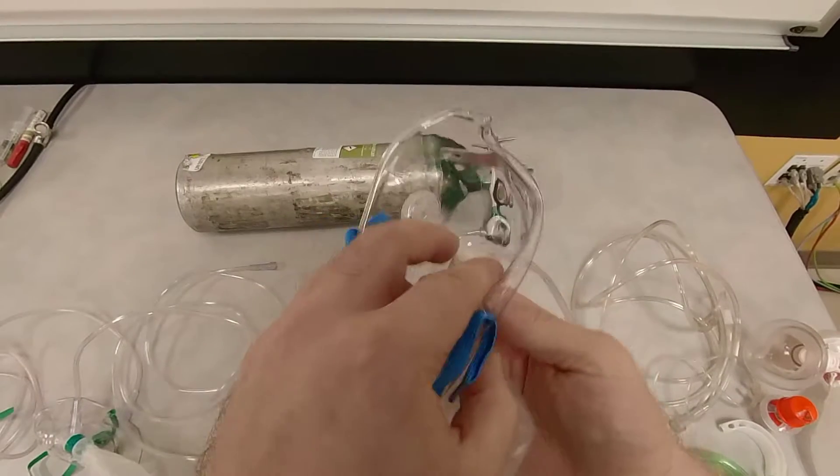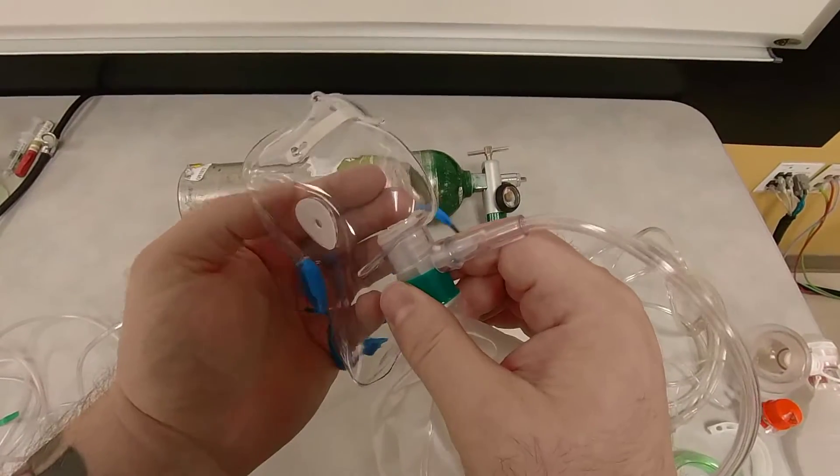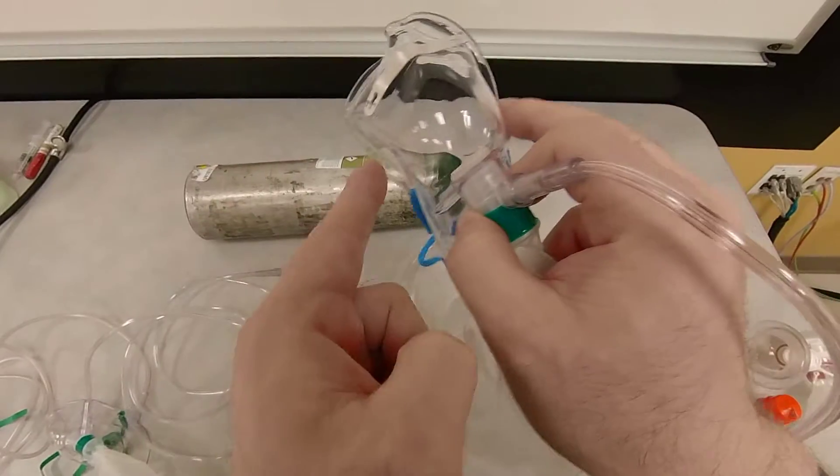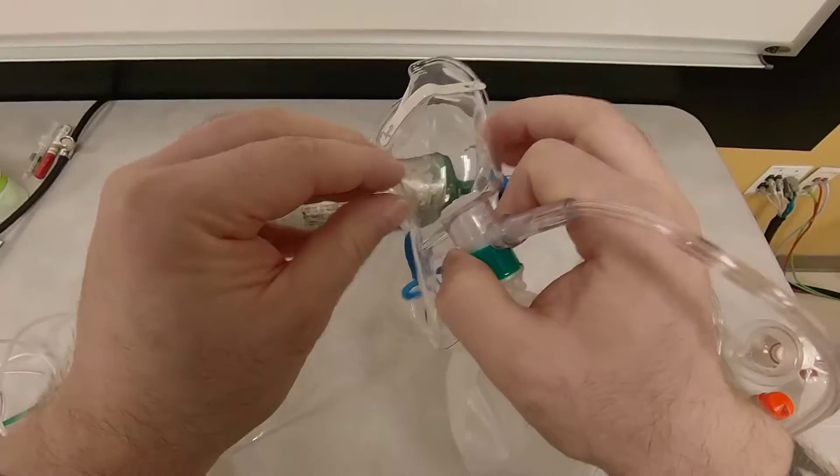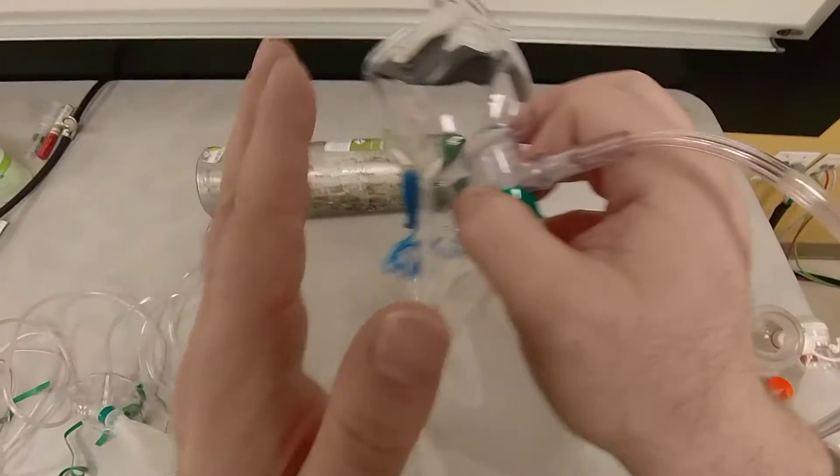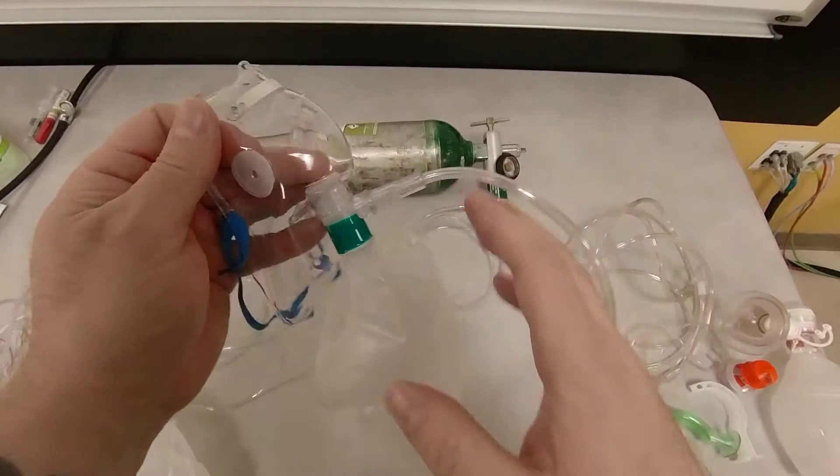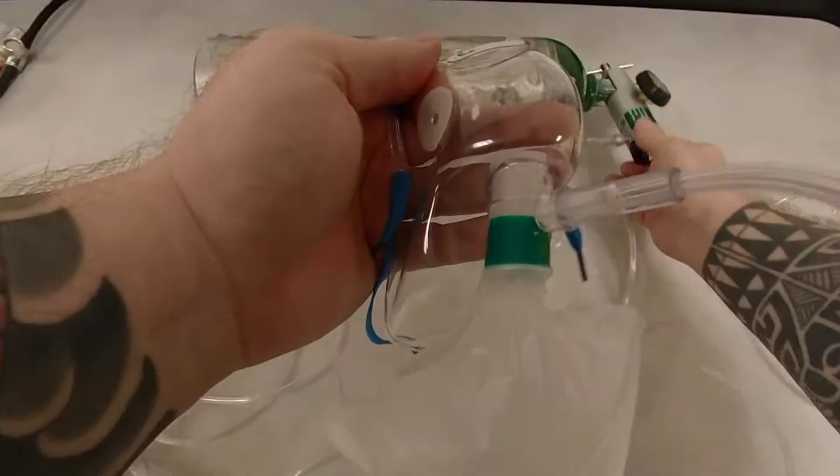Every time they take a breath in, air goes in through here. When they are taking the breath in, no air is going through here. When they exhale, the air gets escaped through these, but nothing gets re-breathed. That's why they call it non-rebreather mask. But the issue with this is if your oxygen ran out, no more oxygen.